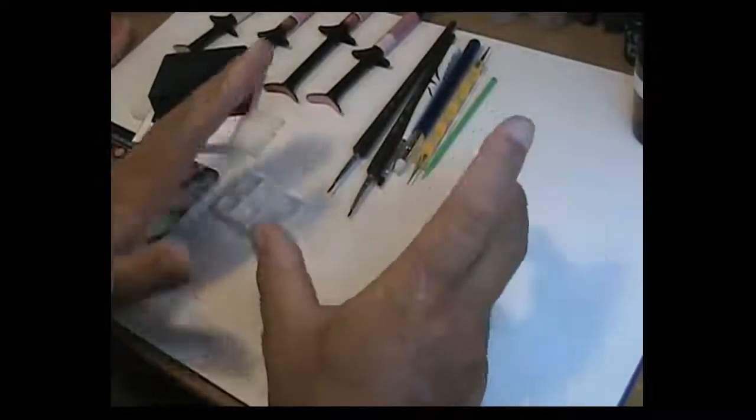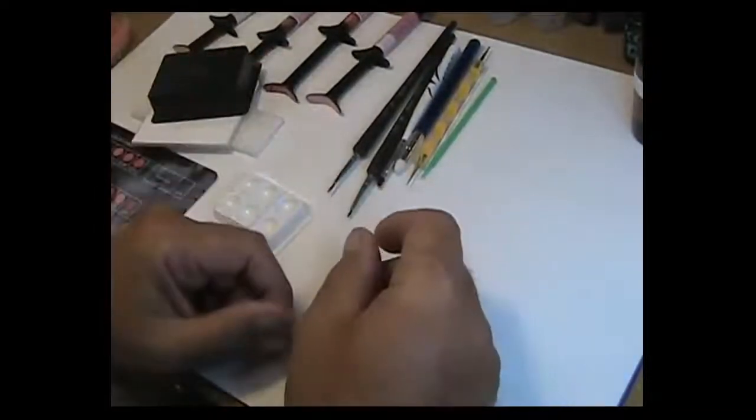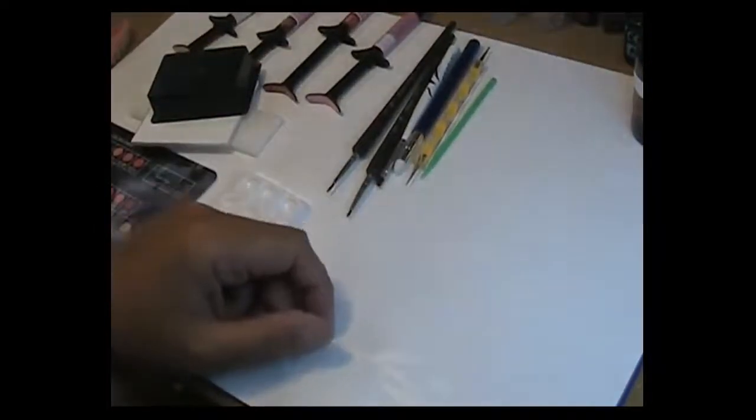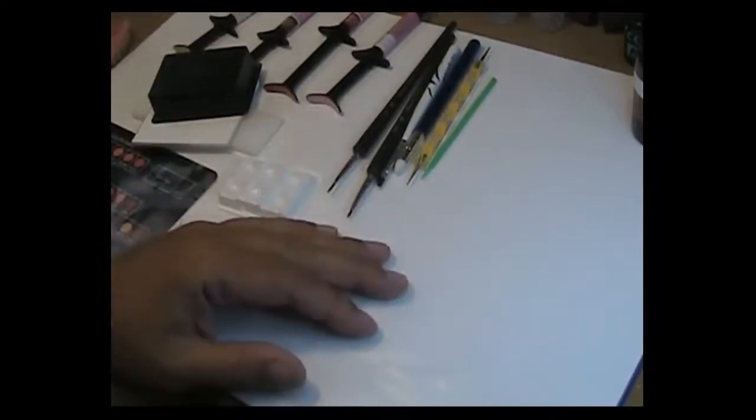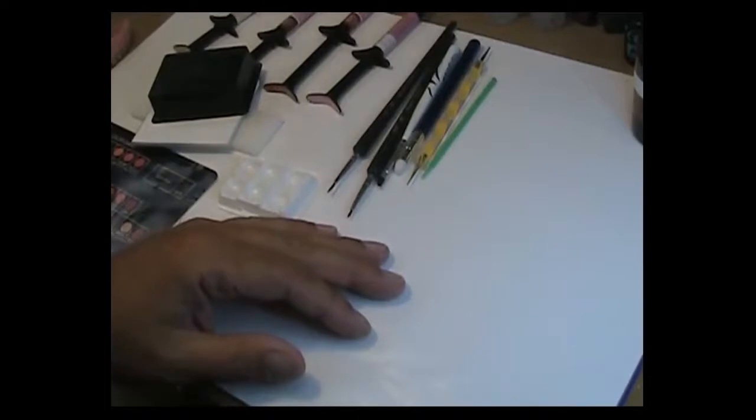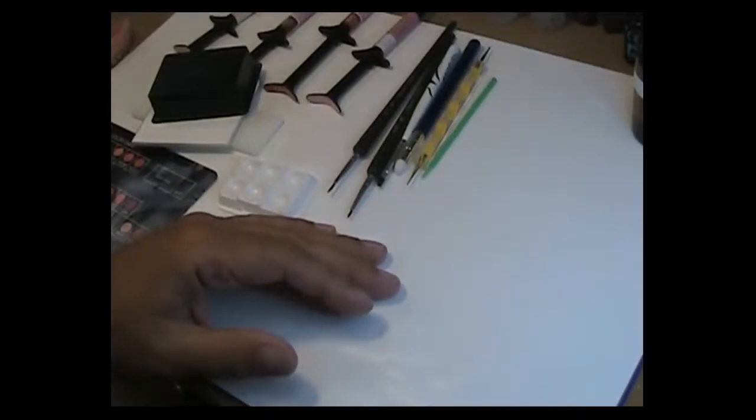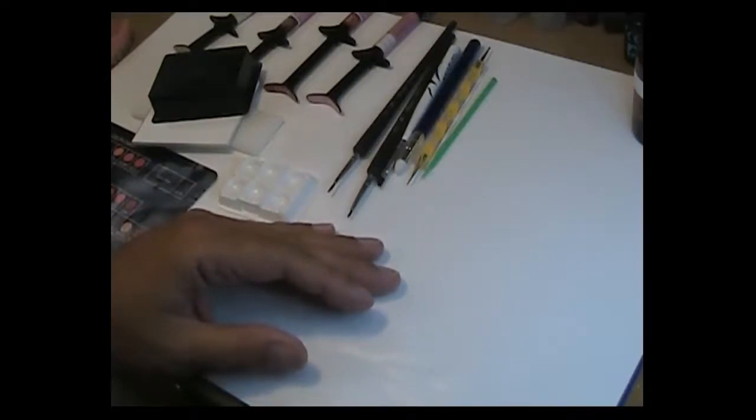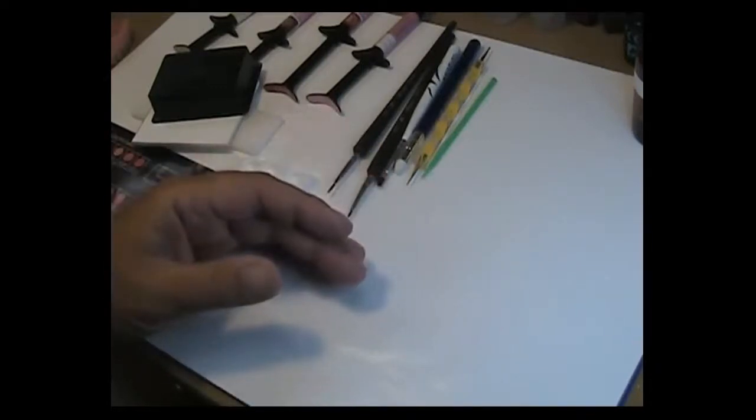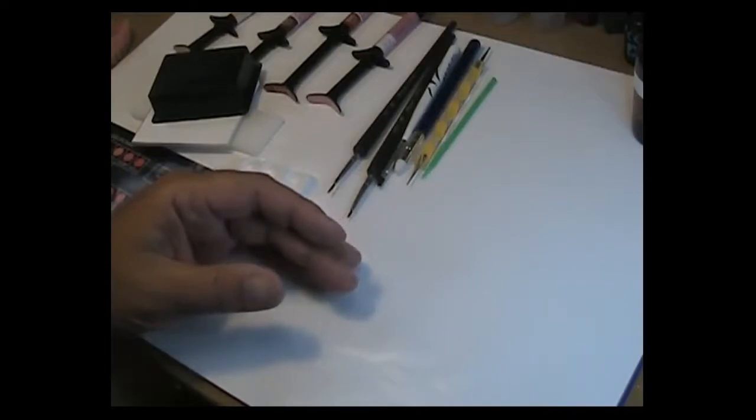I've had a lot of questions about the Gradia gum and how it's used and which products to use. I thought I'd do a little review today to give you some insight into the products and some of the ancillary things that I would recommend to anybody that's going to get into this type of characterization.